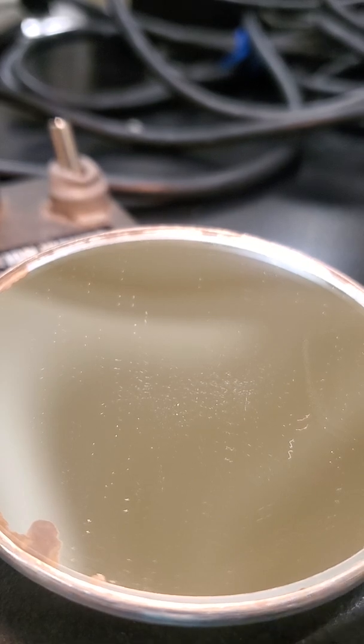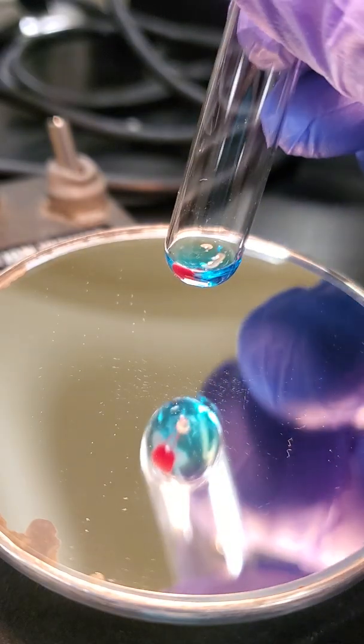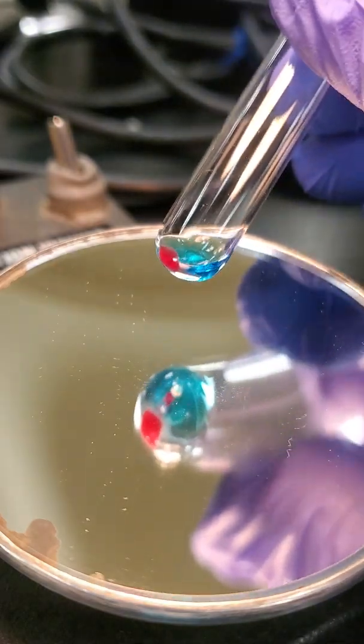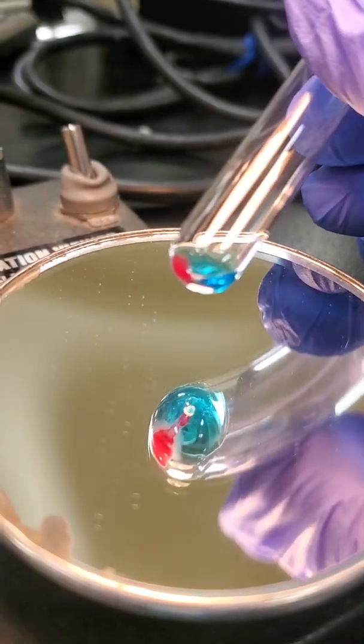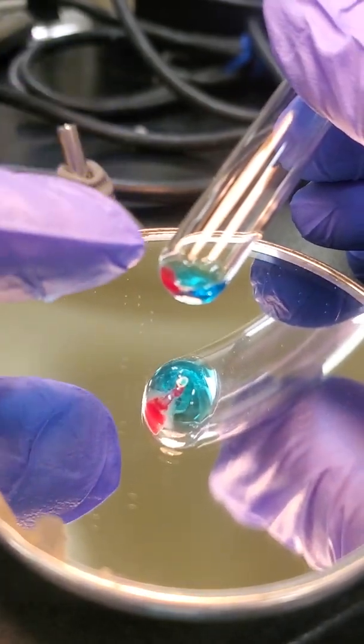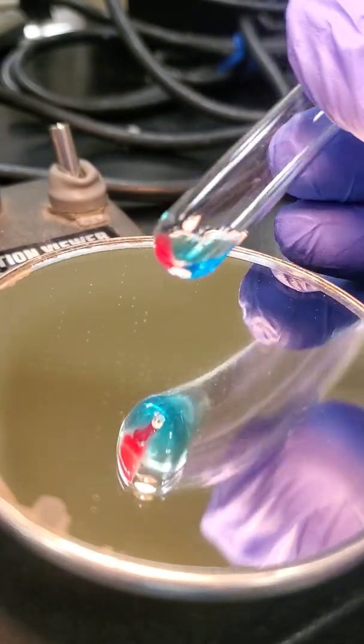And I'm just going to do one tube at a time. Typically, ABO/Rh reactions are very strong or non-existent, so we shouldn't really have anything too much in between. But here we go. We're looking in the mirror, and I want to have my cell button pointing up, and I'm going to start rocking that.